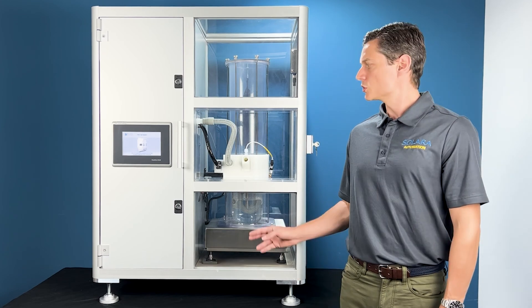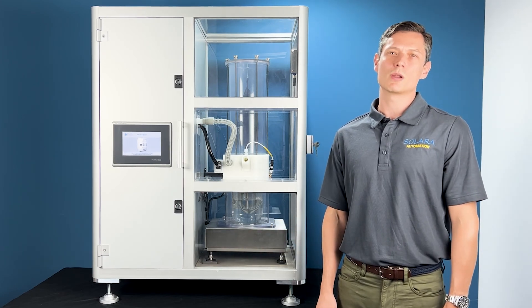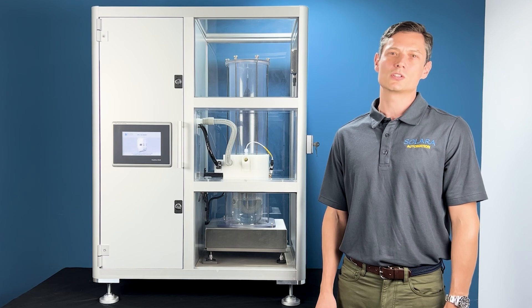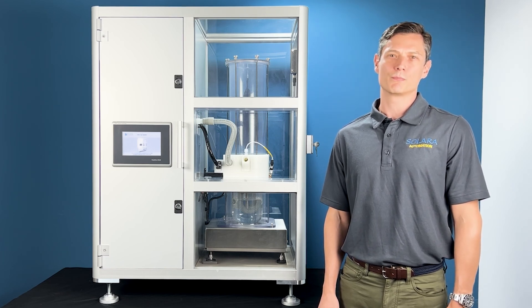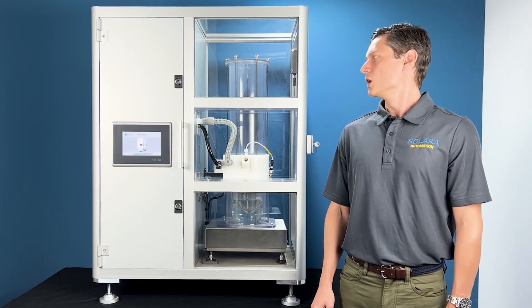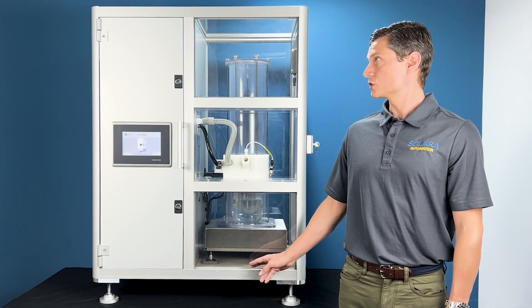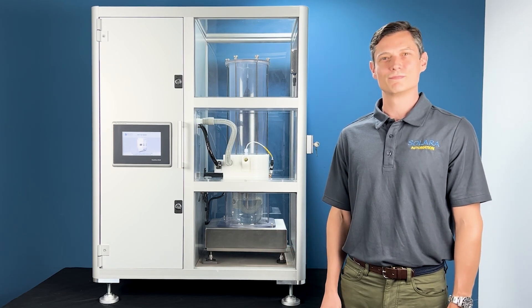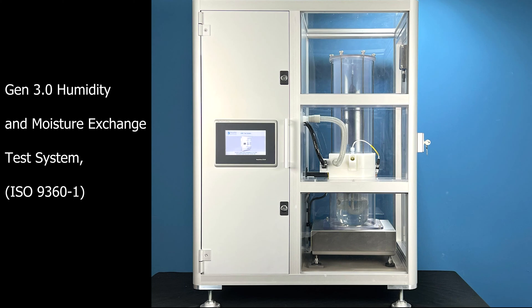This is our generation three system and it makes improvements upon prior generations in both performance and operator usability. Please join me as we talk about the system in more detail. The system was designed for operating in a lab setting on top of a table.